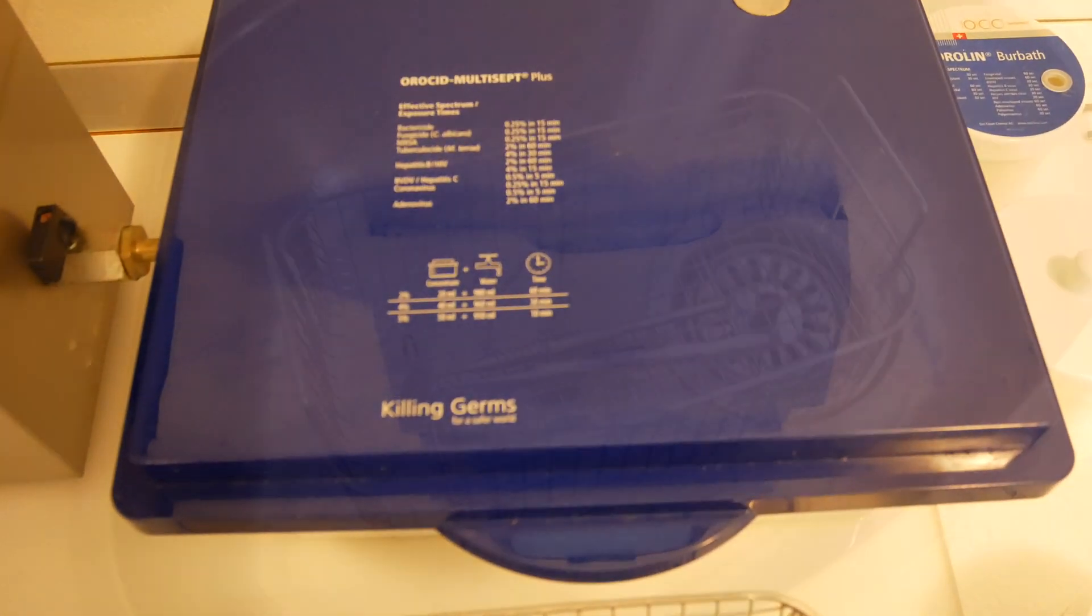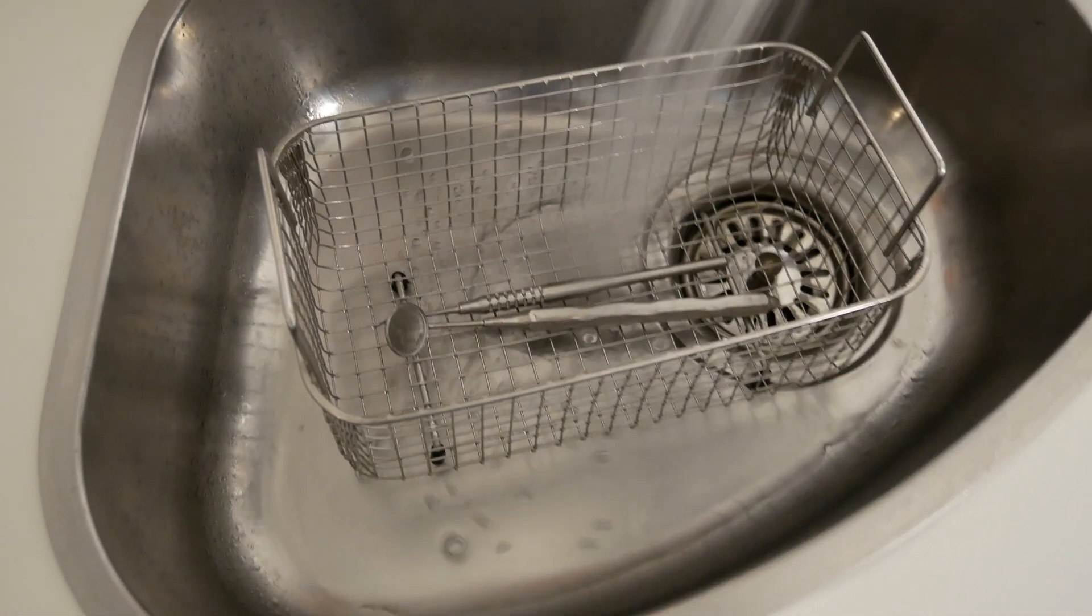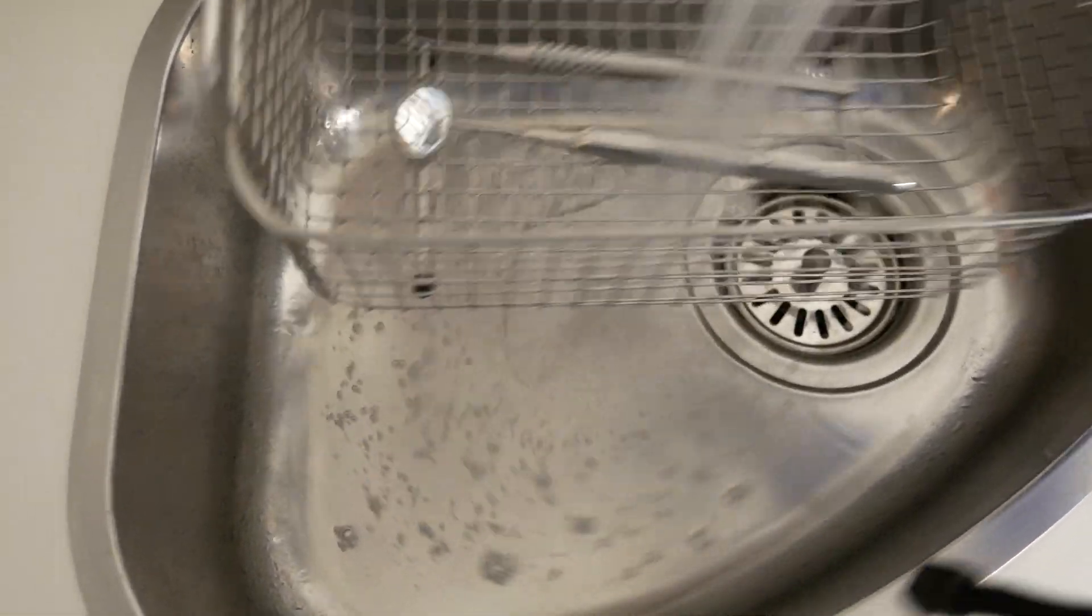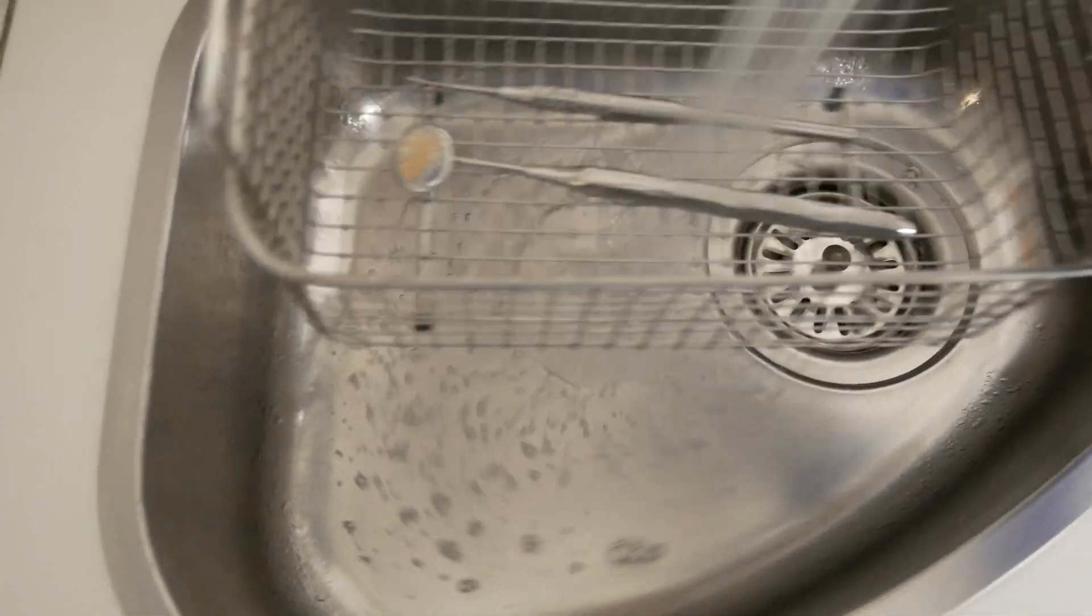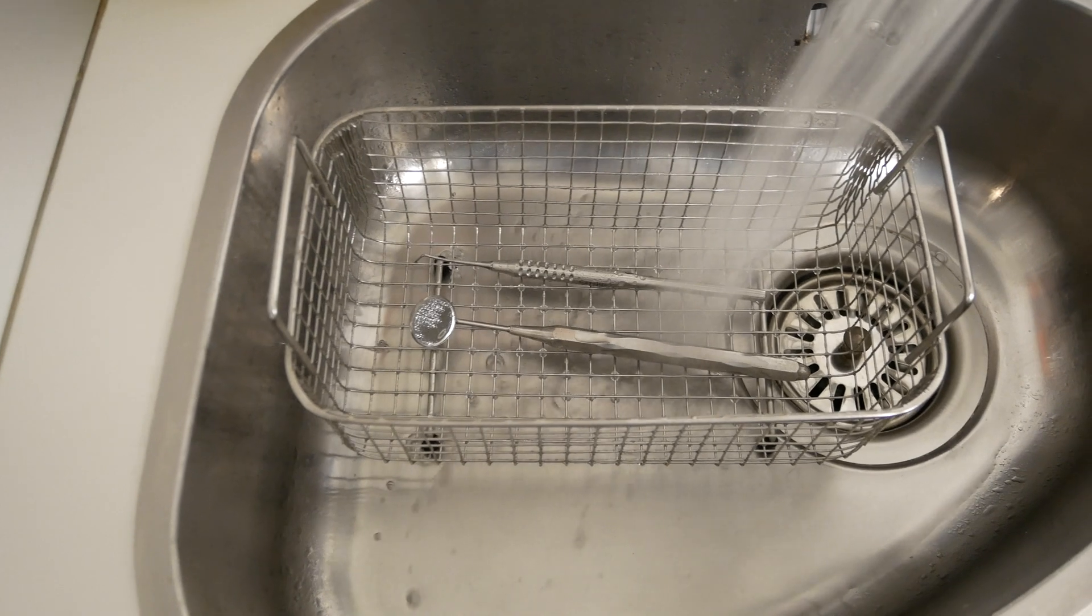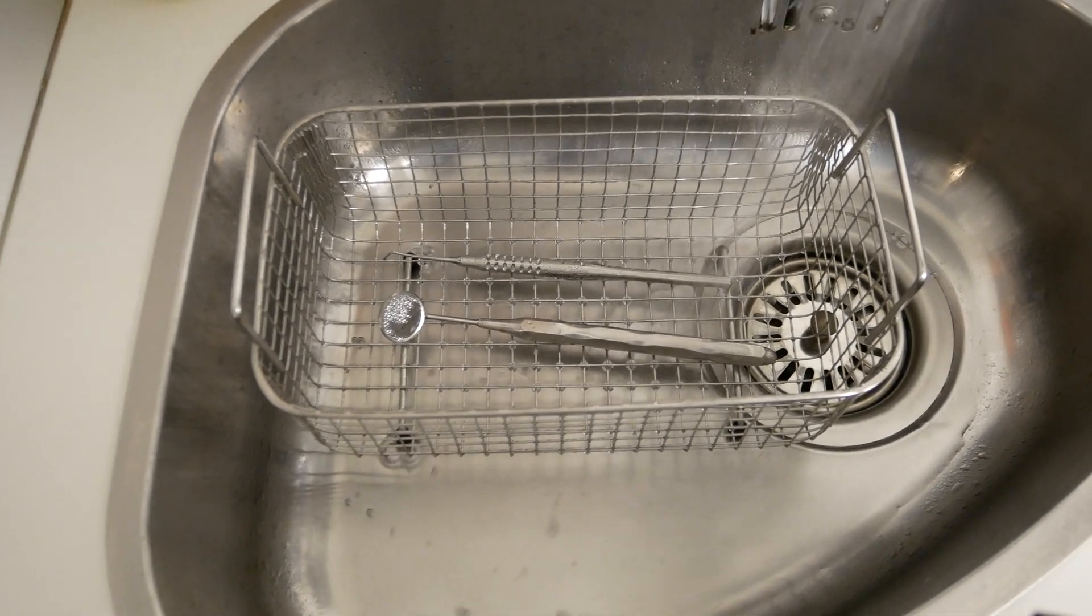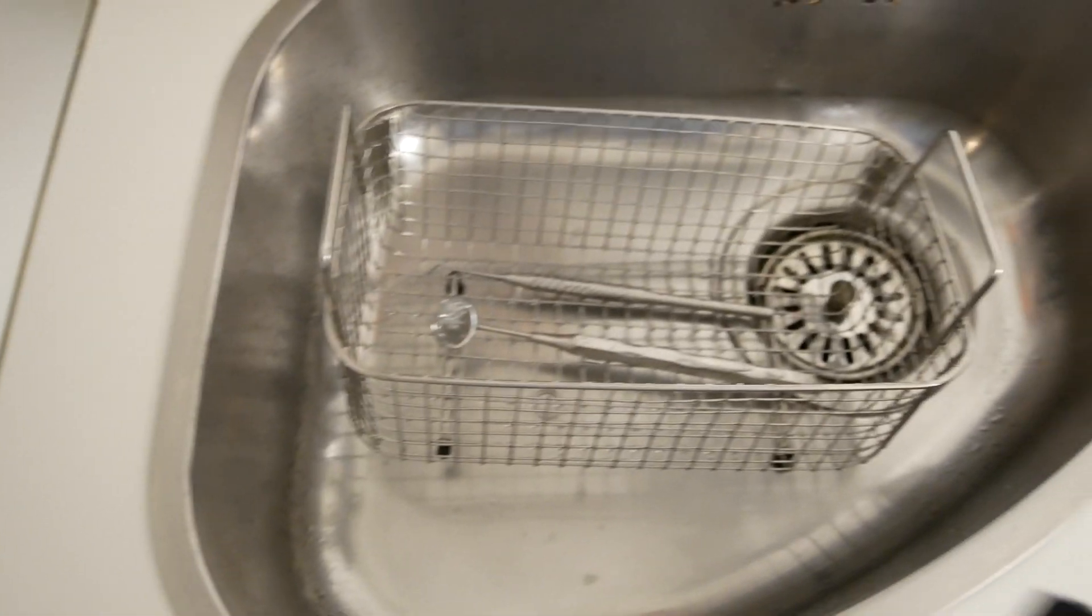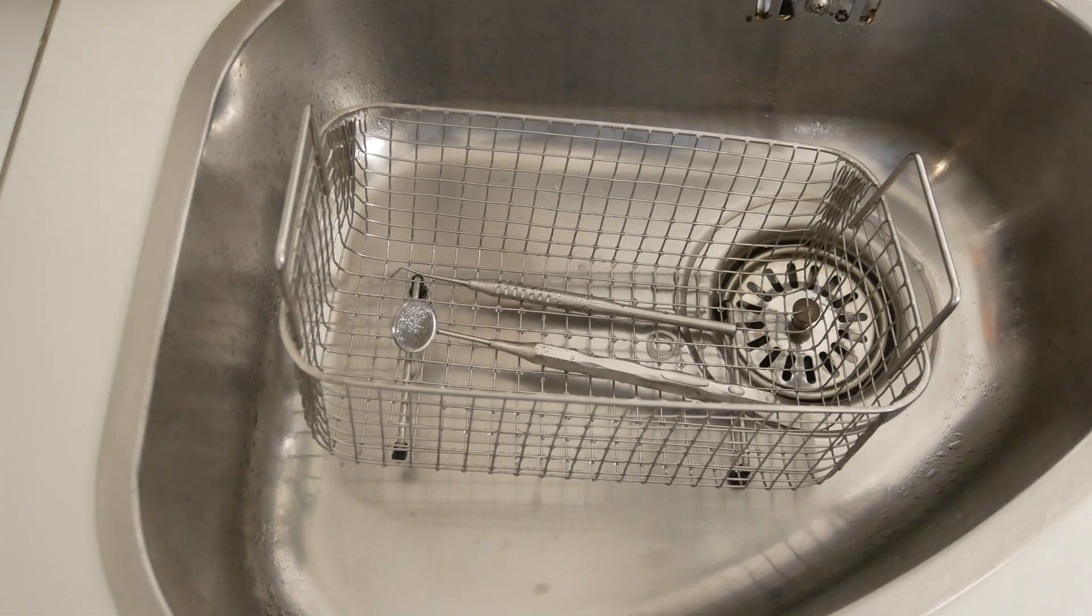After one hour, we'll go and rinse our instruments. Okay, we're rinsing the instruments again. And after that, they'll be ready for packaging. Let them drain for a minute or two.